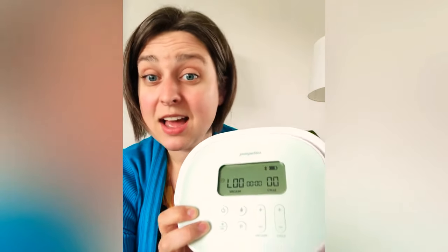The P button on here is for setting the programs. If you click the power button quickly it will pause the pump, and then you can restart it. When you turn it back on it starts back at the beginning, not where you left off — which I actually like, because at the end of a pumping session I'm less sensitive and can turn the suction up higher, and I don't want to accidentally start there next time.